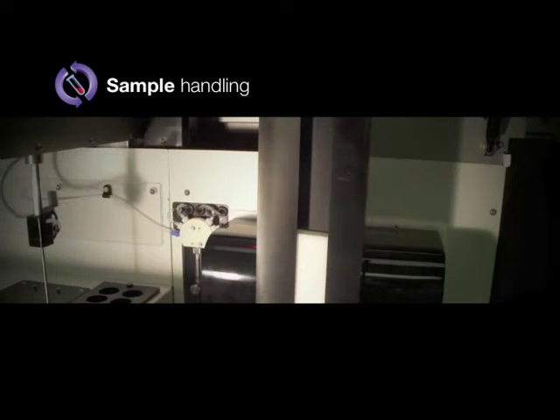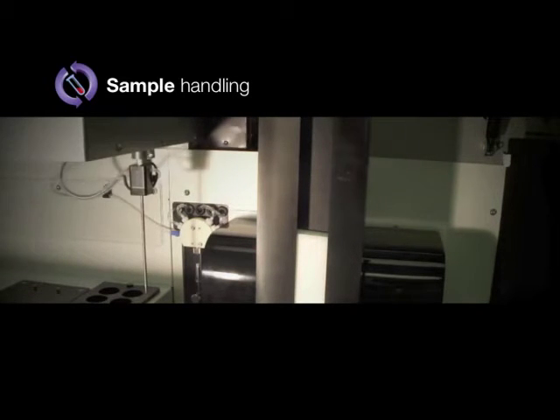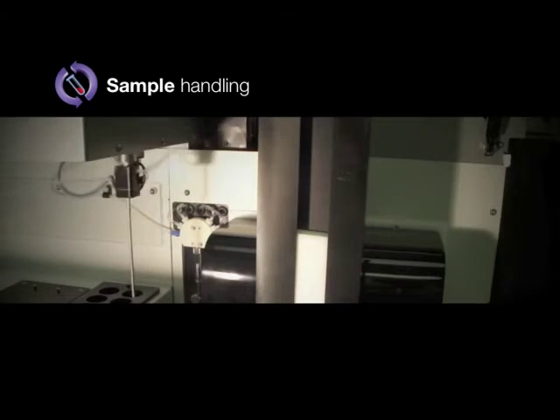Our unique, complete, free access to the sample loading area allows for continuous, uninterrupted, high throughput analysis.